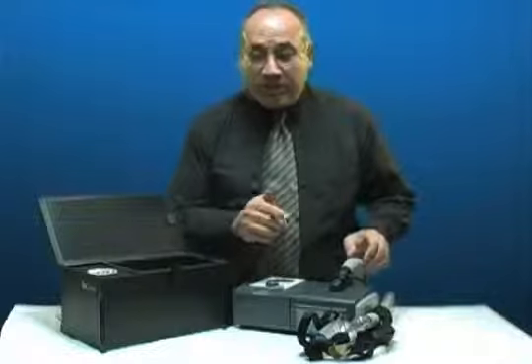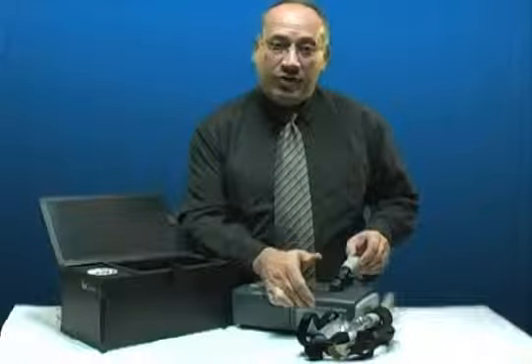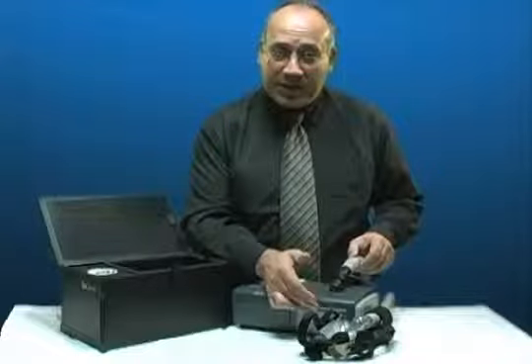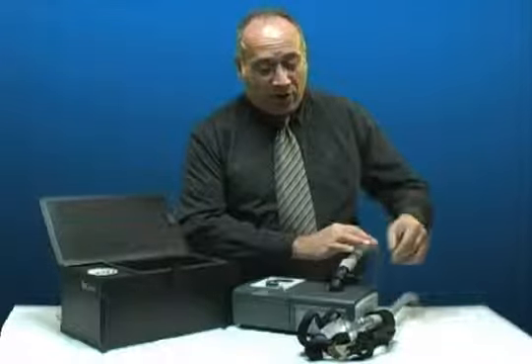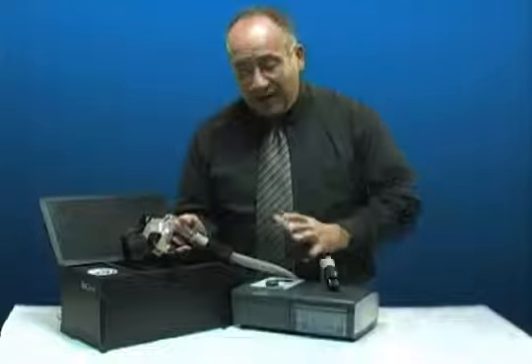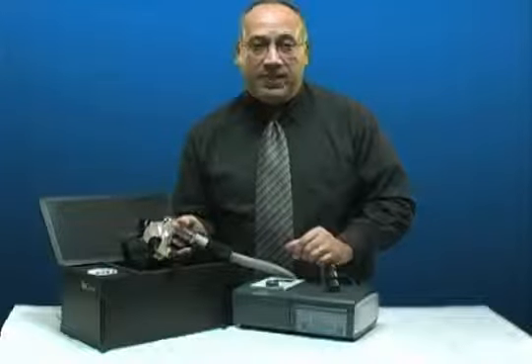That activated oxygen is then pumped directly into the water of your reservoir, so it disinfects your water and your reservoir. It then migrates up your hose, out of your mask, and into the SoClean — so your entire system benefits from the disinfectant process.